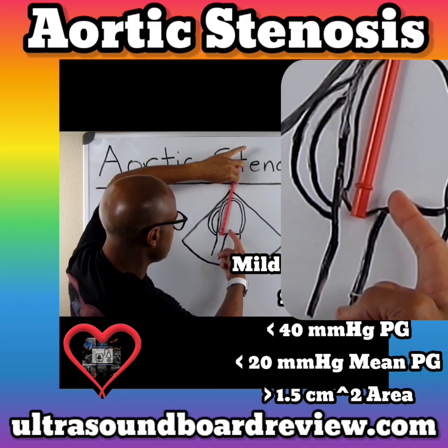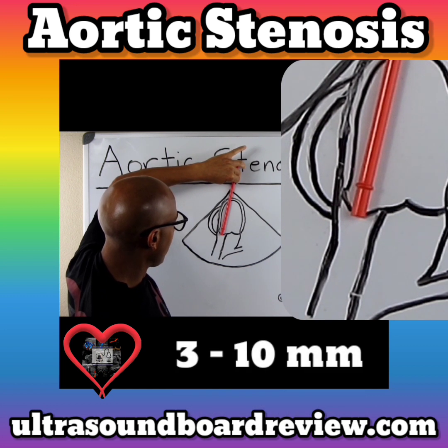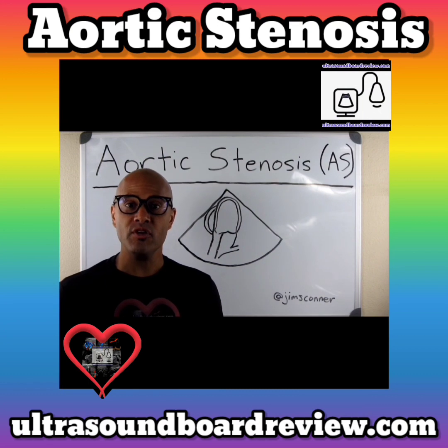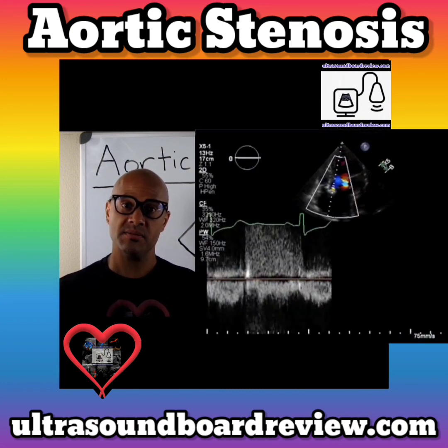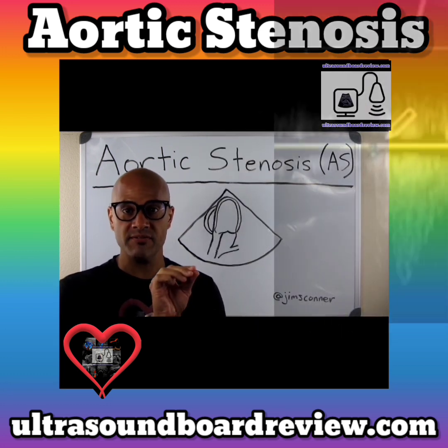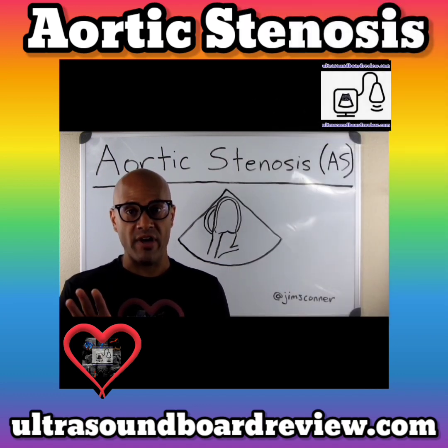Assuming this ring is the sample volume on the Doppler cursor, this should be placed about 3 to 10 mm below the aortic valve. Your LVOT velocities will look more or less like this. Make sure you optimize the gain, reject, and compression. Then freeze your image, trace the VTI, or the velocity-time integral, all the way around, avoiding any artifacts.